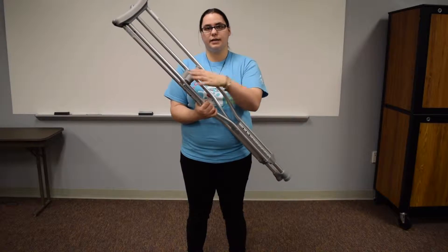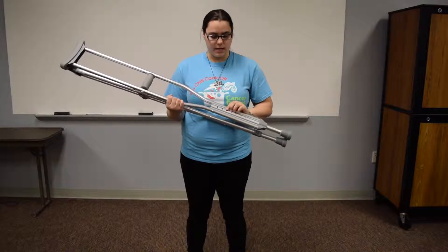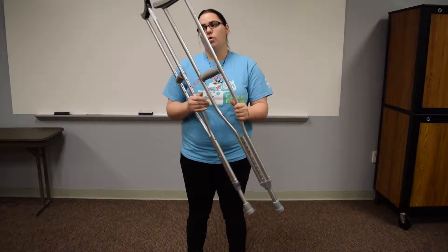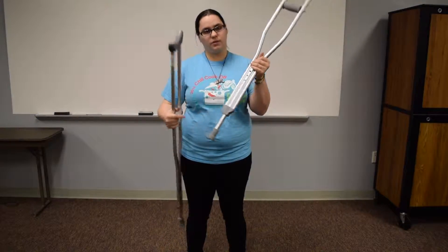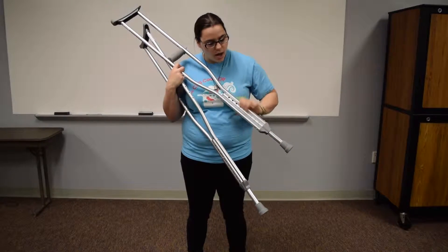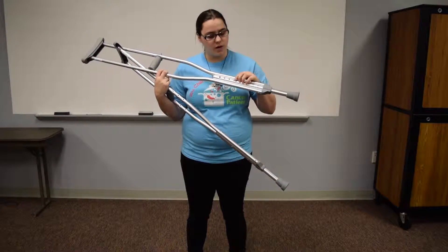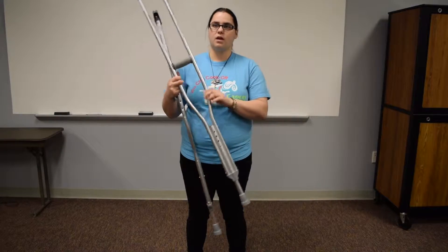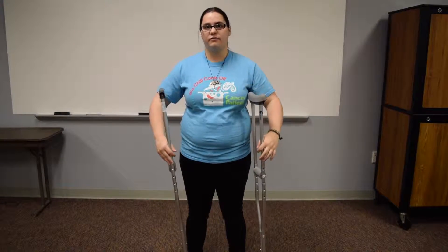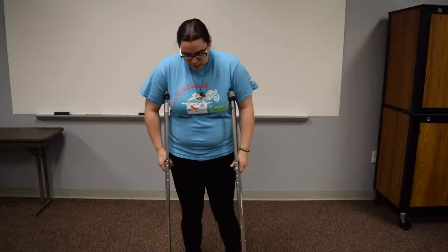You can adjust the length of your arm as well as the height. How do you know where the height needs to be? Typically, they will have numbers that correspond to your height. I am 5'5", therefore the snap should be at the 5'5" mark. That's just a suggestion — if something's a little off, you can obviously adjust it to a different height, but it works for me.